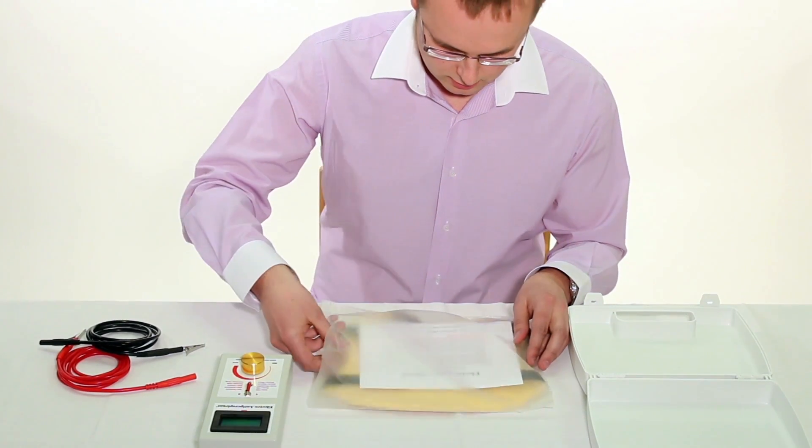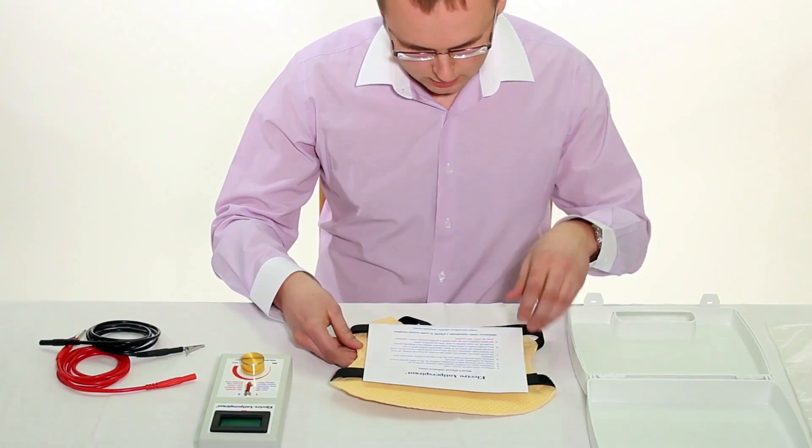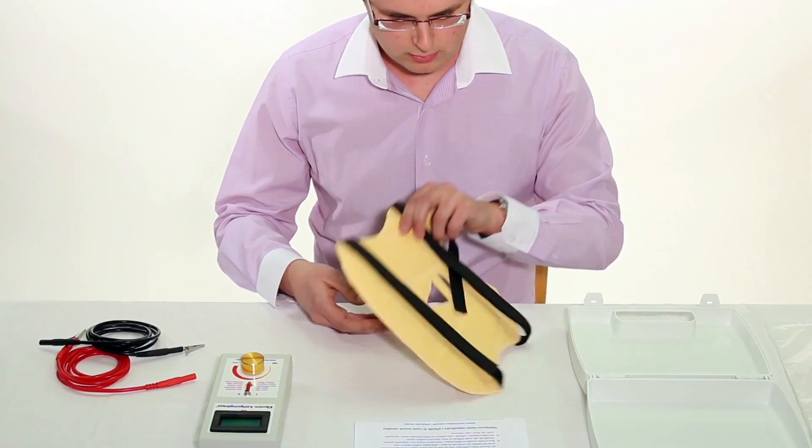First, carefully remove the face mask of electro antiperspirant device from original packaging along with the enclosed manual and turn it towards yourself.